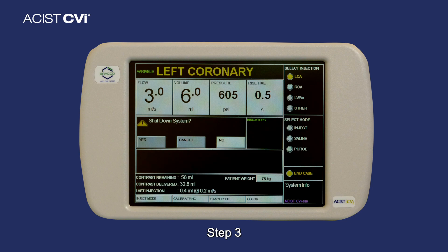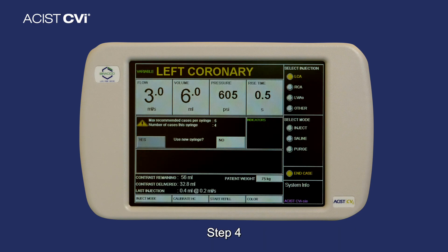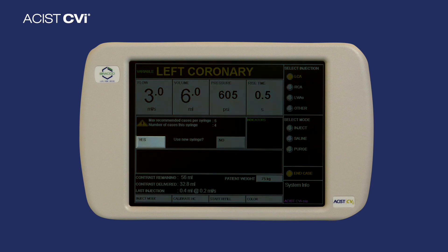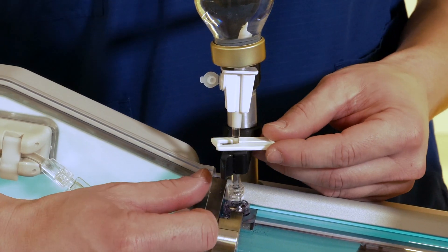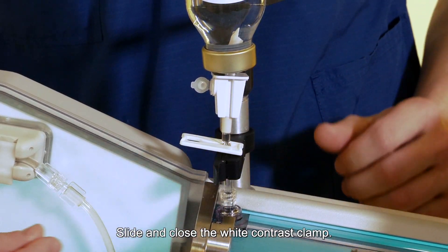Step 3: select No when prompted to shut down the system. Step 4: select Yes to start a new case with a new syringe. Step 5: slide and close the white contrast clamp.